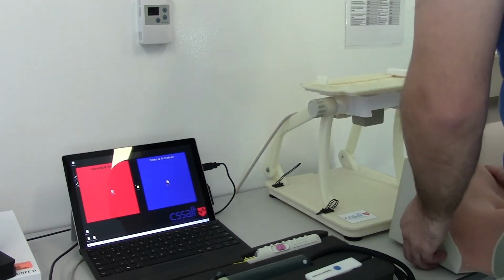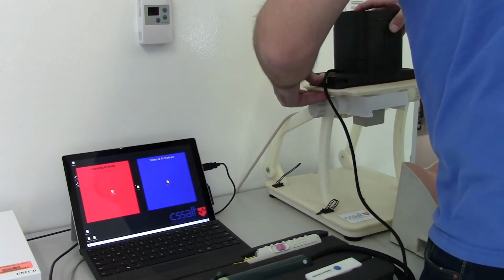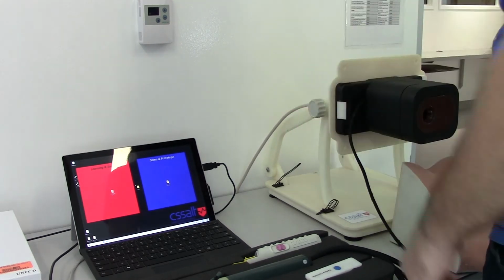This anatomical block is made to mate with the SMARTS platform. SMARTS stands for System of Modular Augmented Reality Tracking Simulators. The simulation shares the same components with our other SMARTS-compliant modular mixed reality simulators.